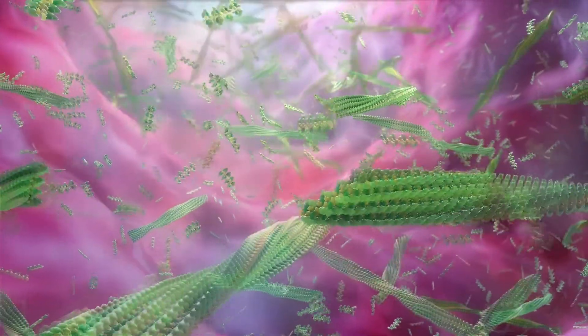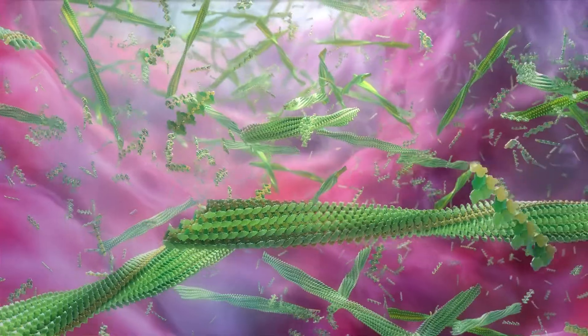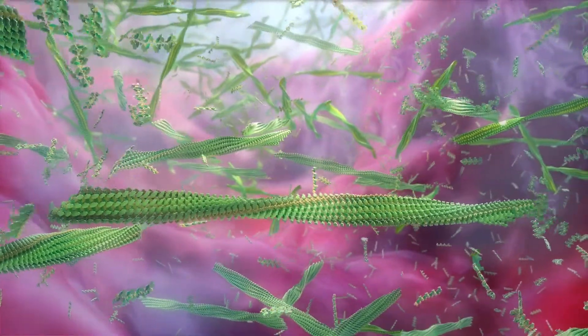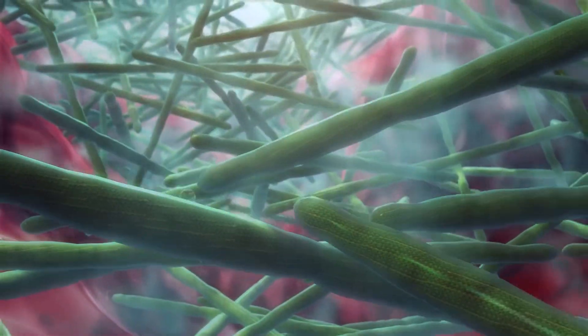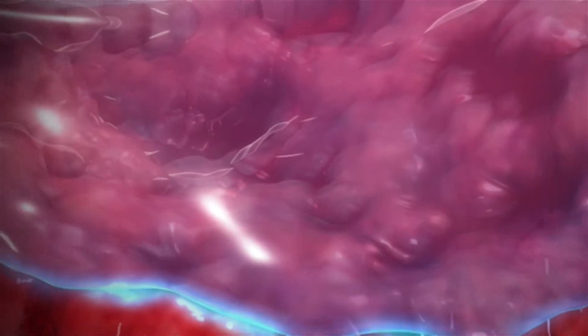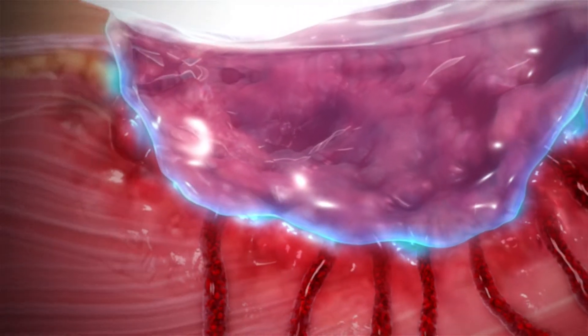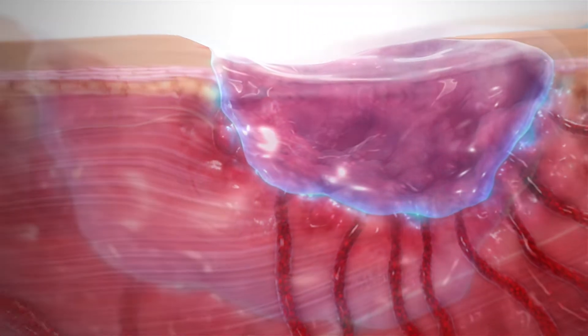The resulting network provides a physical barrier to help mitigate contamination and modulate inflammation within the wound bed, as well as creates an extracellular matrix-like scaffold that provides an environment conducive to cell proliferation and angiogenesis.